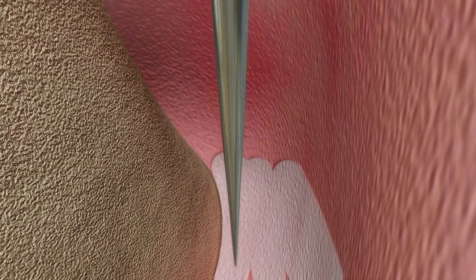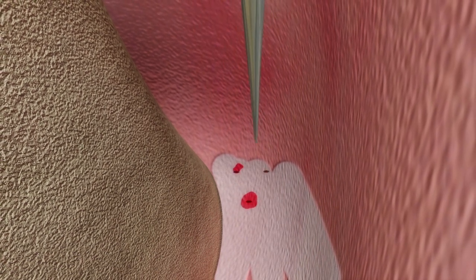Next, the endodontic explorer is used to slightly perforate the cortical bone to get good angiogenesis and release the regenerative factors from the bone. Without a great blood supply, our clot cannot mature.